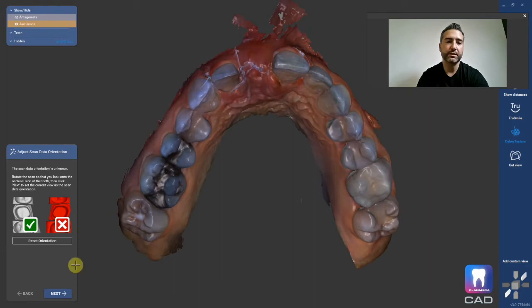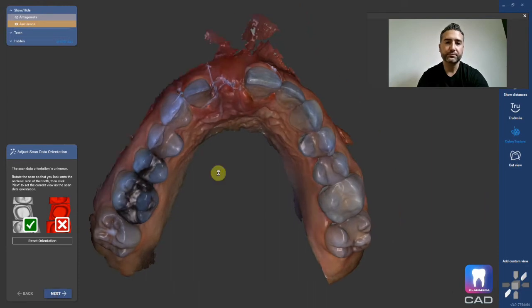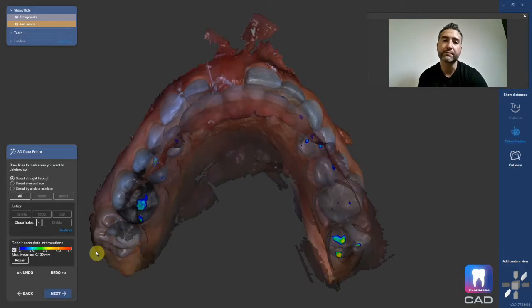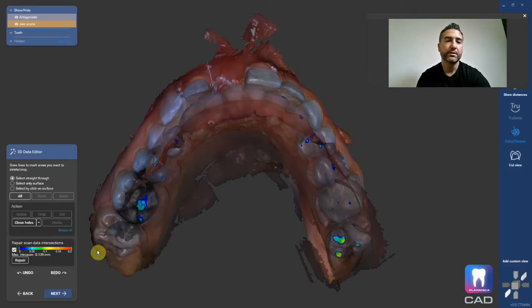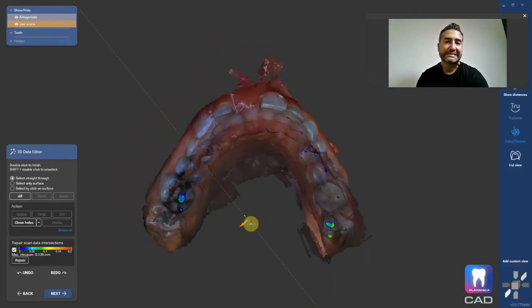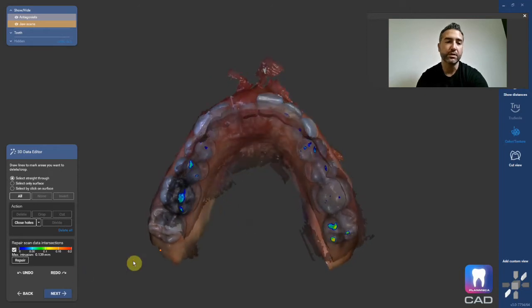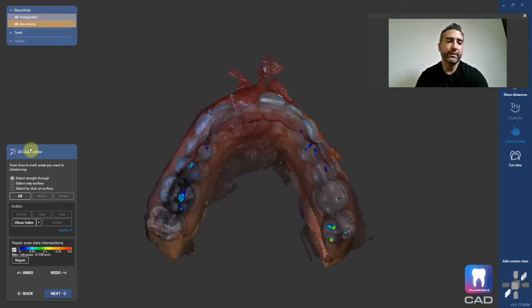Set the orientation to look straight down. This is going to be so easy it's going to be stupid — you're going to wonder why you're farming all your stuff out to labs. I love my laboratories and work with them closely, but easy stuff like this does not need to go to a lab. They get all my high-end big full mouth reconstructions and big zirconia work.